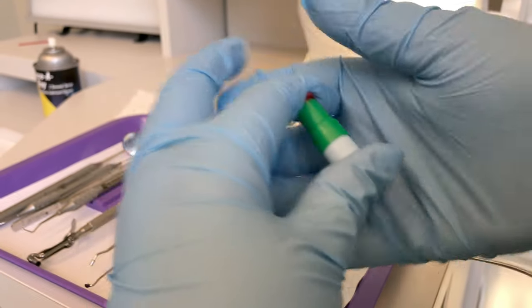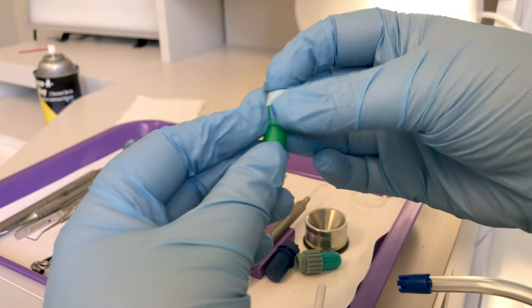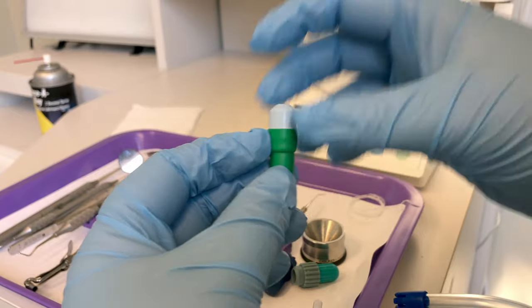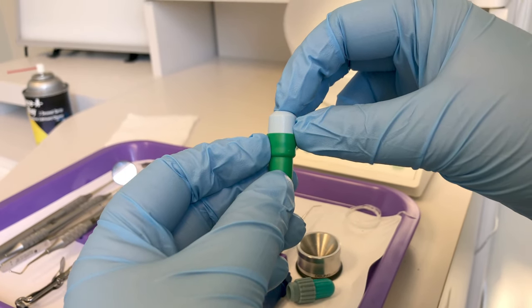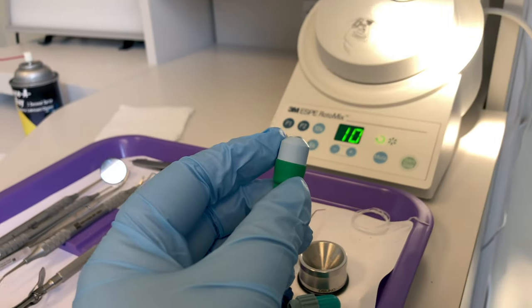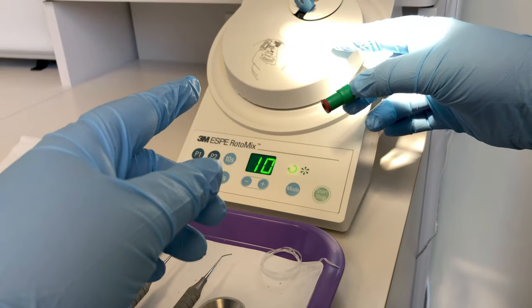I'll activate this one — just squeeze it together. You can either squeeze it in your hands or press it on the countertop. Activating it will allow the mercury liquid and the powdered alloy made of silver, tin, copper, and zinc to mix in the triturator.